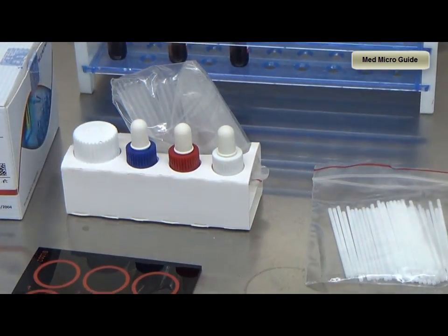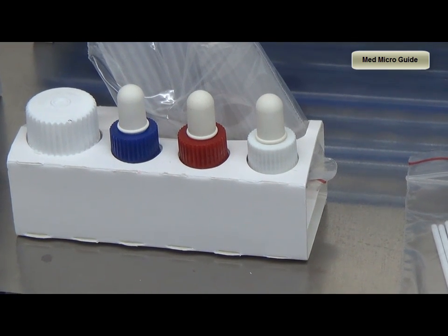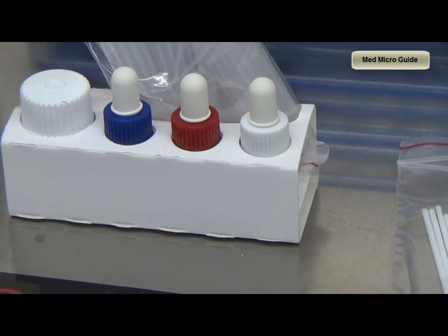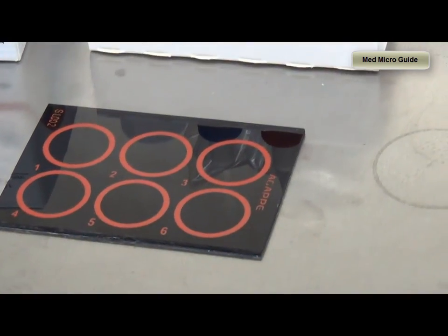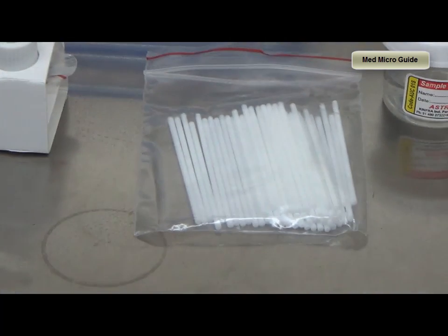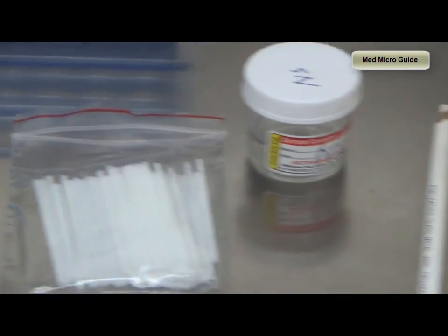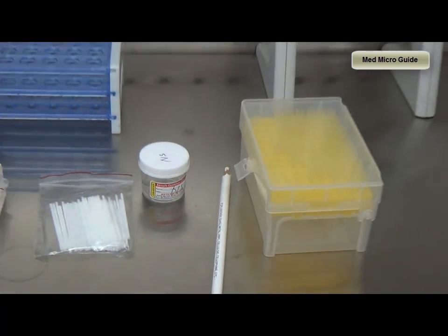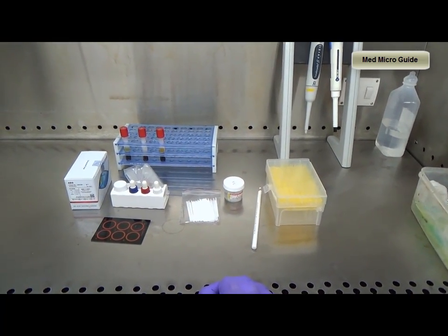Commercially available kits will provide ASO reagent, positive and negative control sera, dilutional buffer, slide, and applicator sticks. We also require a glass marking pencil, micropipette, and tips. The test can be done qualitatively and quantitatively.